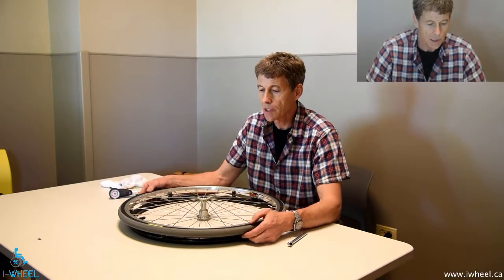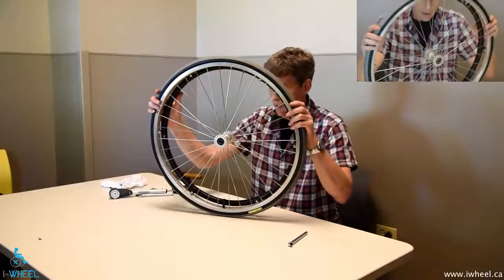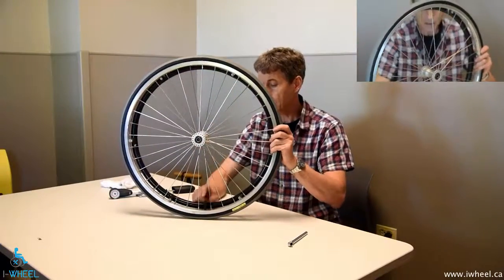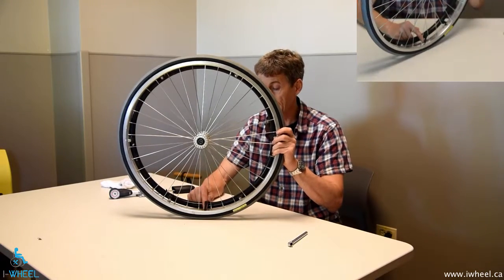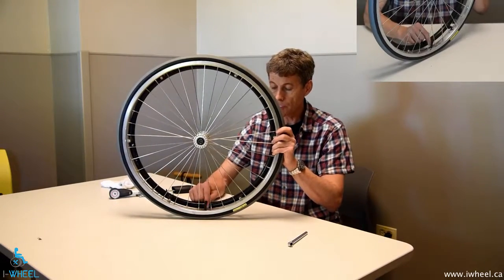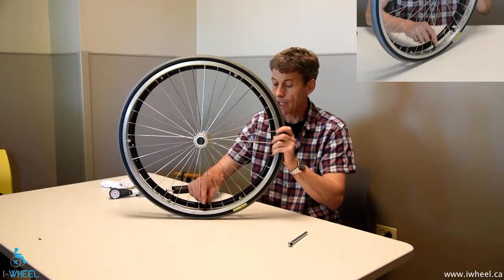Hi, I'm Ian Dennison, Equipment Specialist at GF Strong Rehab Centre, and I'm here today to talk about tyres and wheels on wheelchairs. Here we have a not unusual wheelchair wheel, and what you might notice as unusual is that the valve isn't sticking perpendicularly out of the wheelchair rim. It's important that it be perpendicular to take any strain off the inner part of the valve edge and reduce the likelihood of a flat.